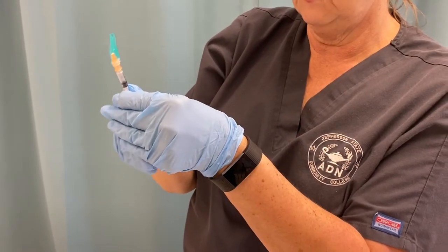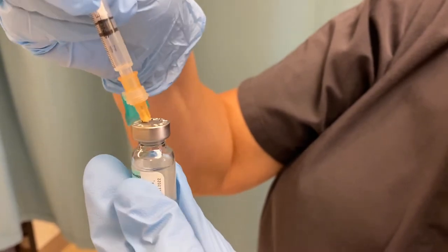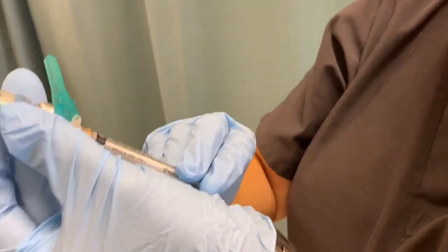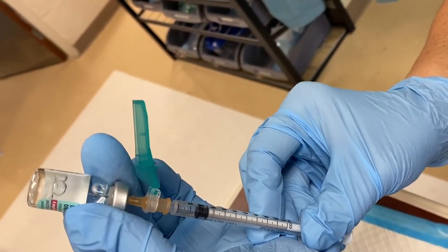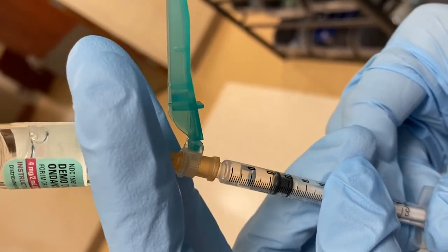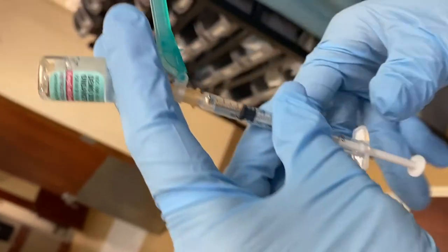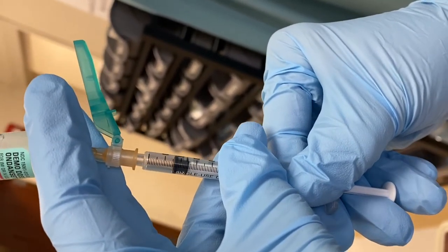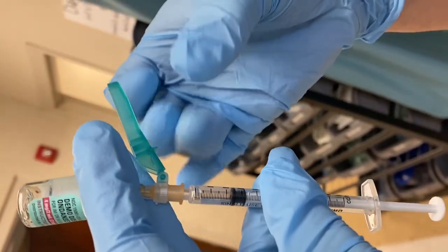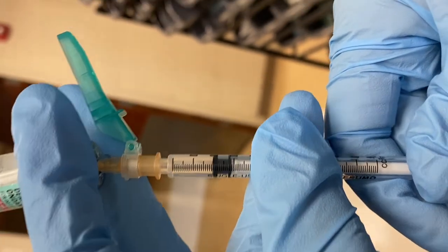You have 0.2 milliliters of air. I'm going to inject air to air — I never want my needle to go all the way into the fluid. Inject my air, then I'm going to directly turn the vial and pull back to 0.2. I inserted 0.2 milliliters of air, so I'm going to get 0.2 milliliters of fluid. Now I have air, so you'll see — you've probably seen a lot of people thump — and that air should go back up to the top of the syringe. If not, you can move it up and back into the vial and slowly come back, and you're going to get all that air out. And now I'm back to 0.2 of medication.